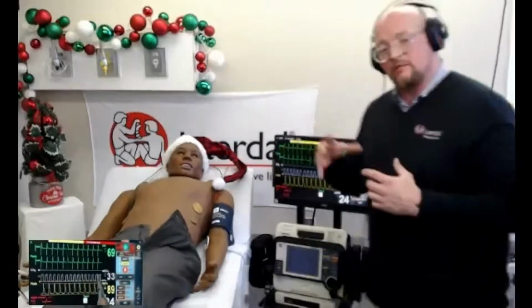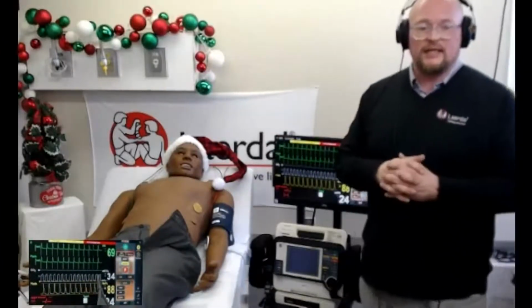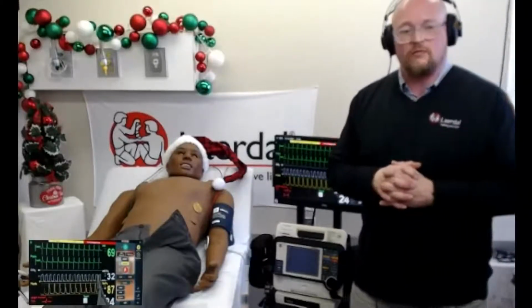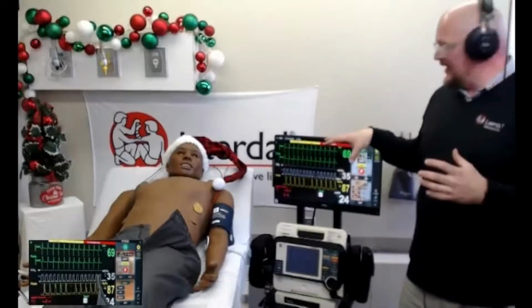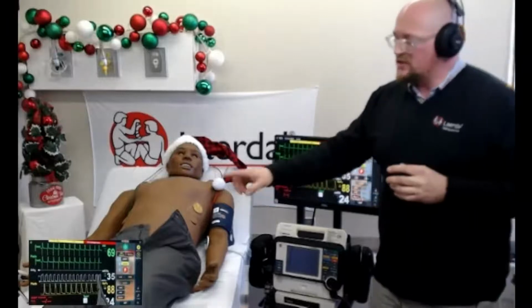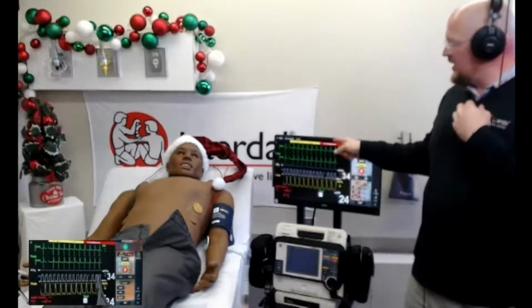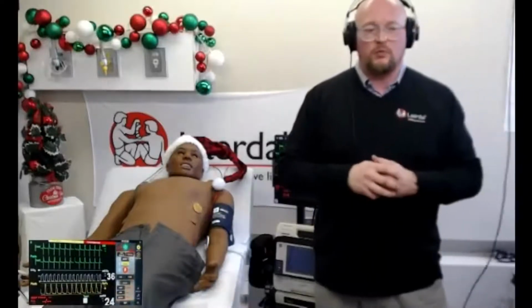But unfortunately, with the virtual monitor, that hasn't linked yet. We do have that ticket put into our Denmark team, software team, our Norway team, to see if we can find a way to link. But mostly that's going to be defibrillator generated. So that's the only thing, is you're going to get excellent electrical capture. However, you're going to be missing out on that mechanical capture. So there's just a couple ways around that.